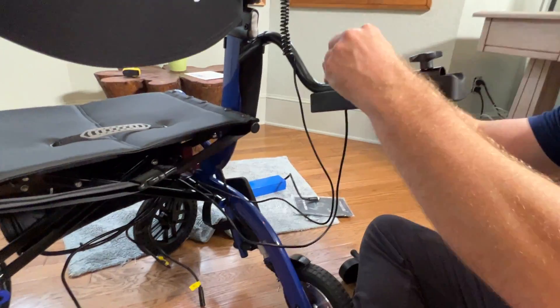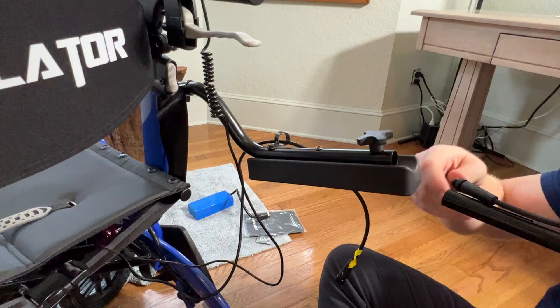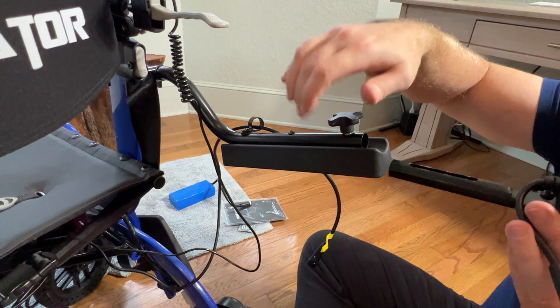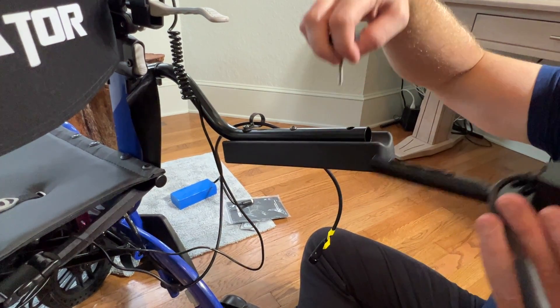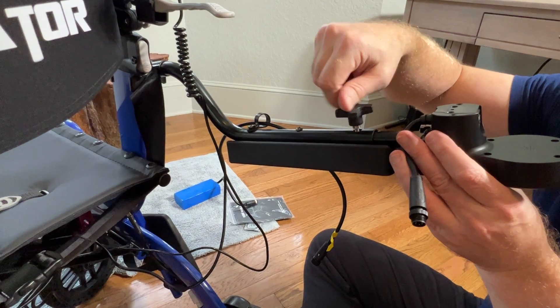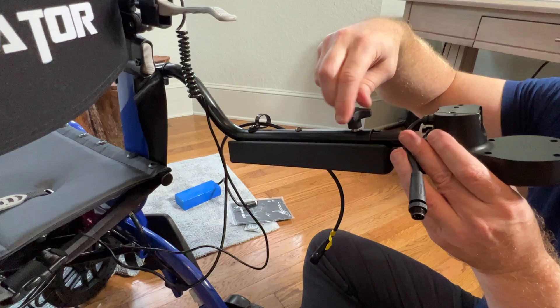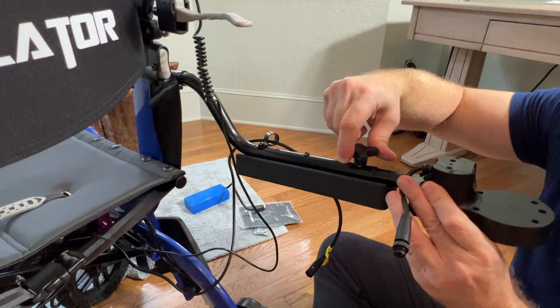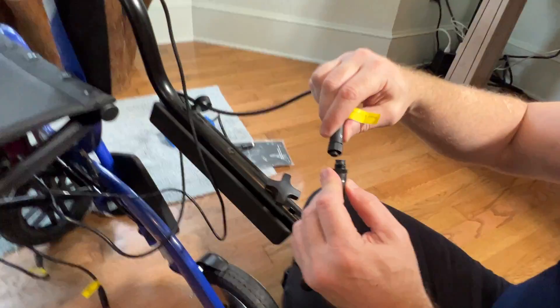Basically I have the front controller here. I'm going to take this screw out — I'm doing everything kind of upside down, but I'm doing it in real time and we don't edit our videos. The reason we don't edit or Hollywoodize these videos is because I like people to see how these work in real time, and a lot of people appreciate that we don't put flowery music on — we're just showing you exactly how it works.